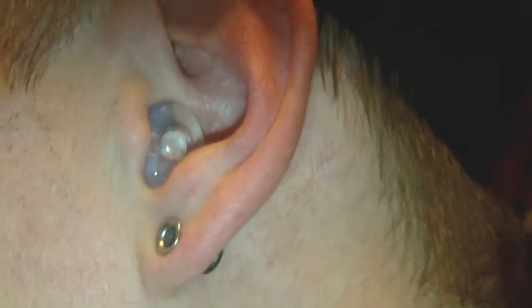The difference between those and generics is incredible. All your highs stay crisp, all your lows are still there — they're not muffled. The only difference is it's 17 decibels lower, which is just enough to take the top off anything loud that is going to cause you trouble with your hearing. They've been tried and I'm now coming back from gigs minus that nasty ringing in your ears that everybody knows is tinnitus.